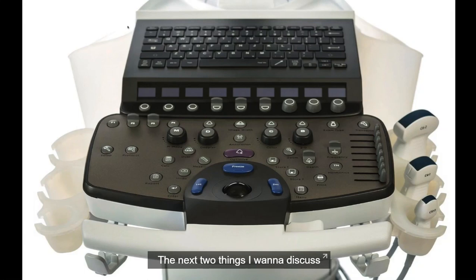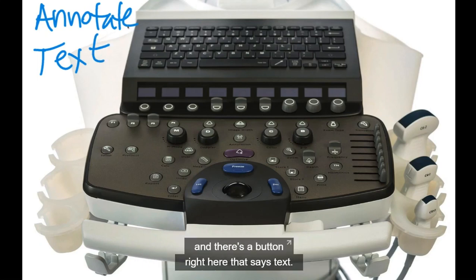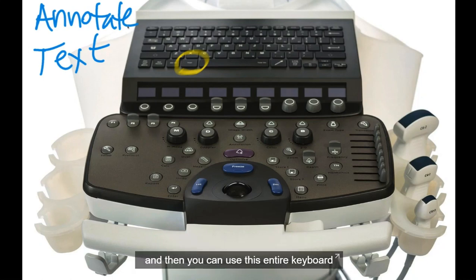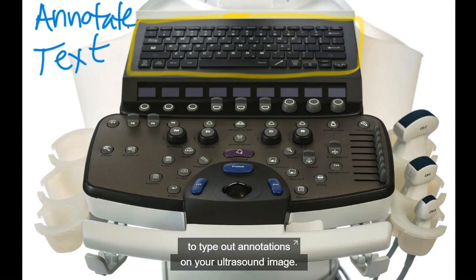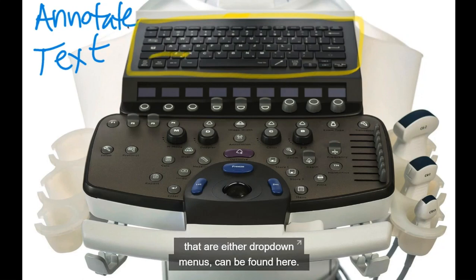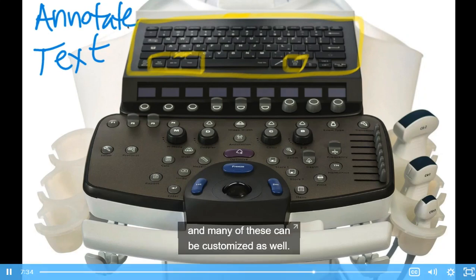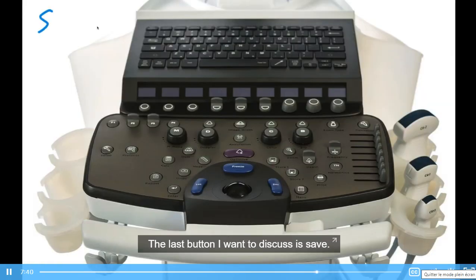The next two things I want to discuss: how to annotate, which is likely labeled text. There's a button right here that says text, and you hit that, and then it will bring up a cursor, and then you can use this entire keyboard to type out annotations on your ultrasound image. And many of them have quick lists that are either drop-down menus, can be found here. Every vendor is a little bit different on their quick lists for annotation, and many of these can be customized as well.